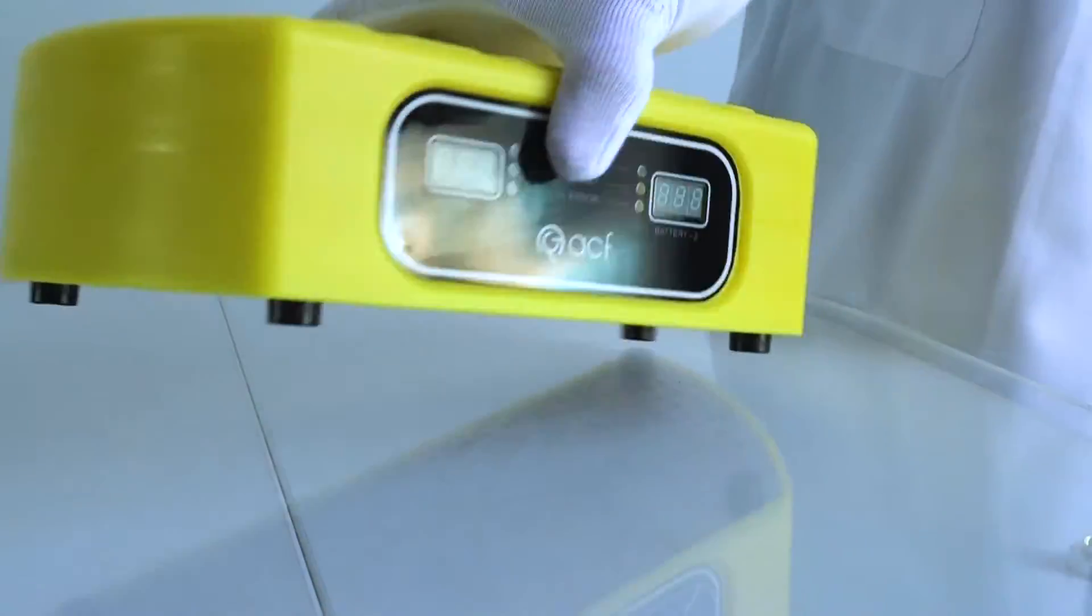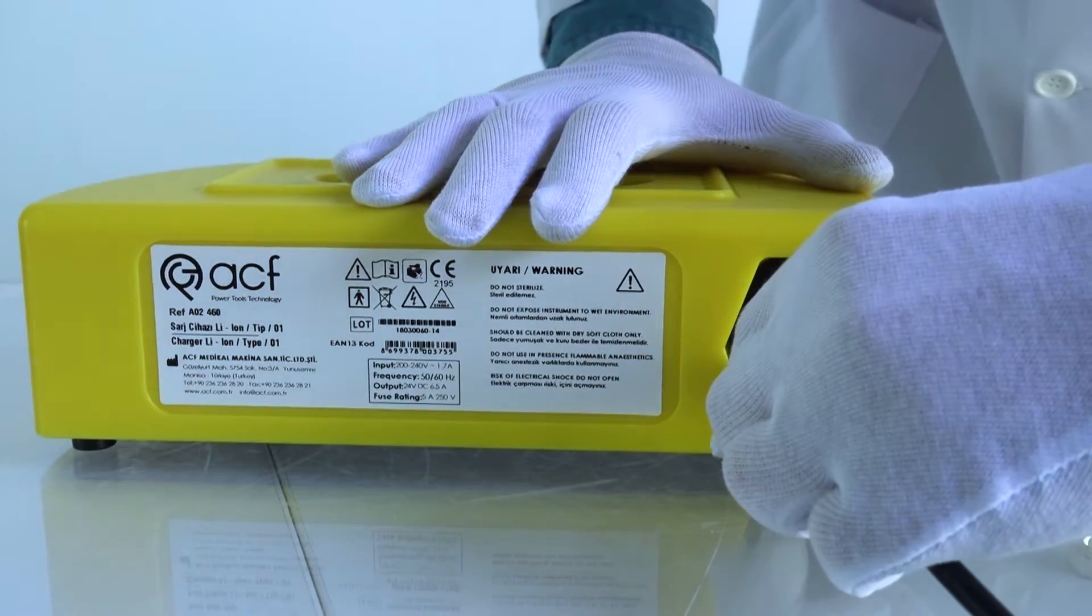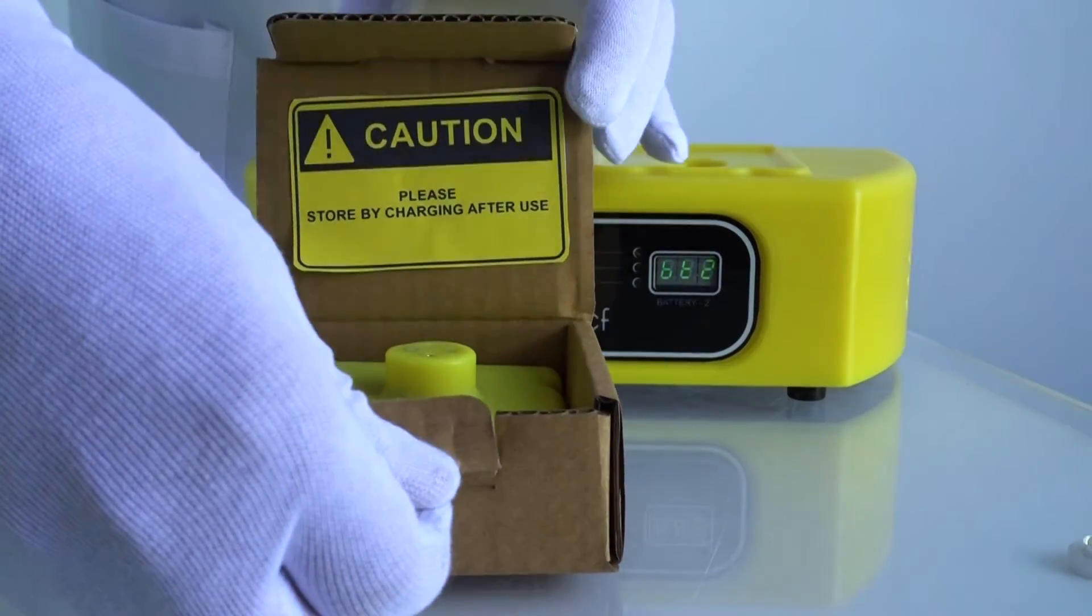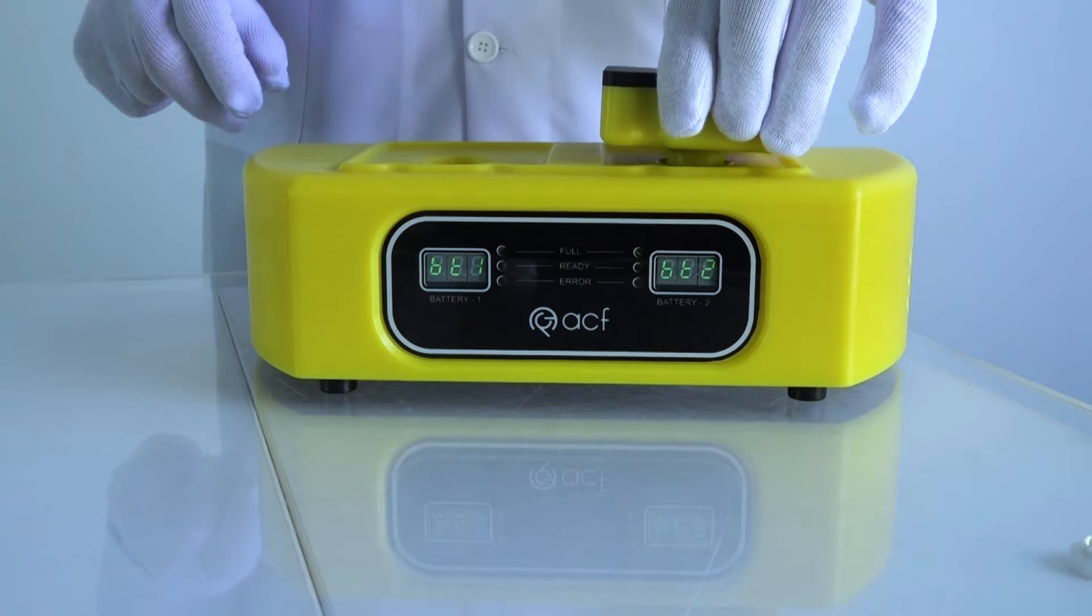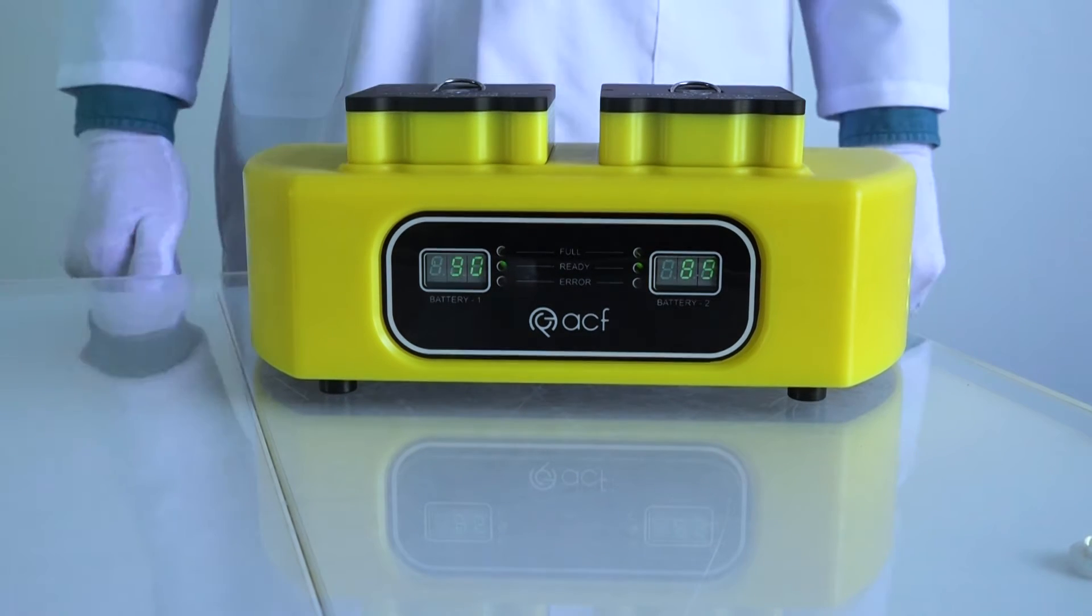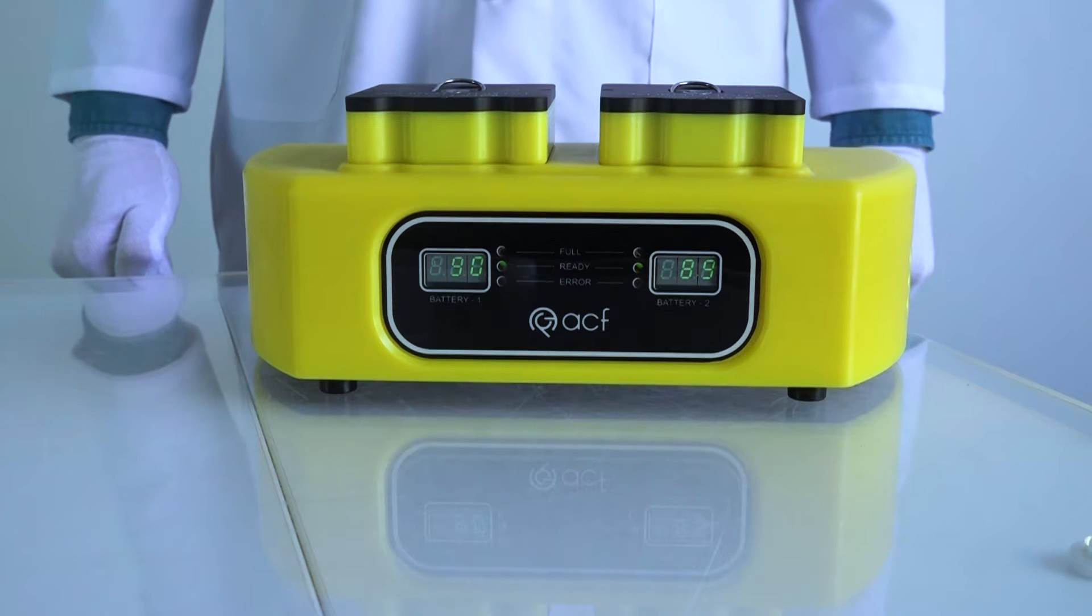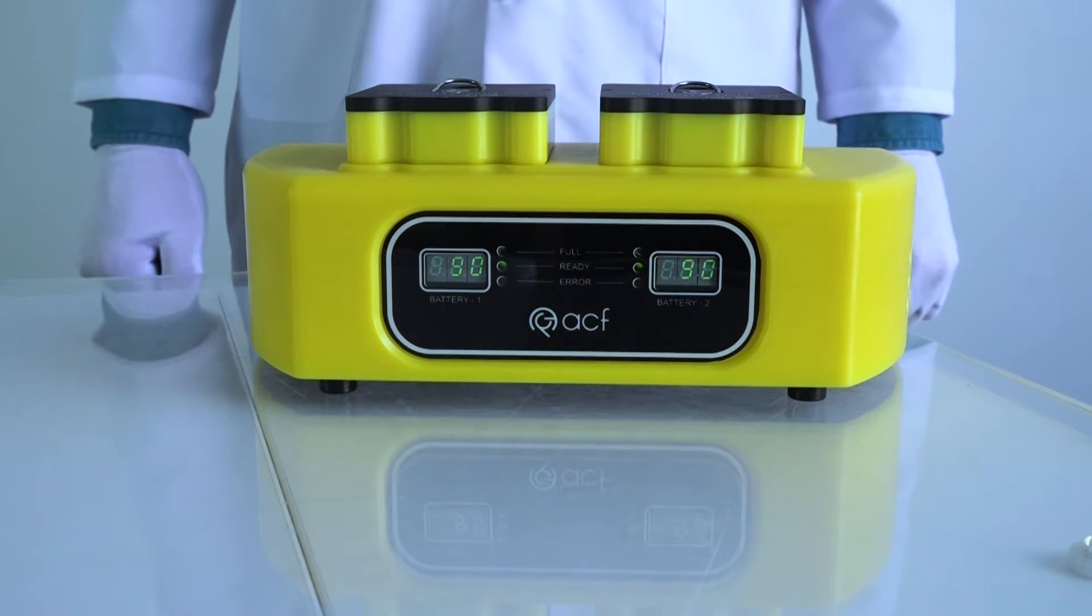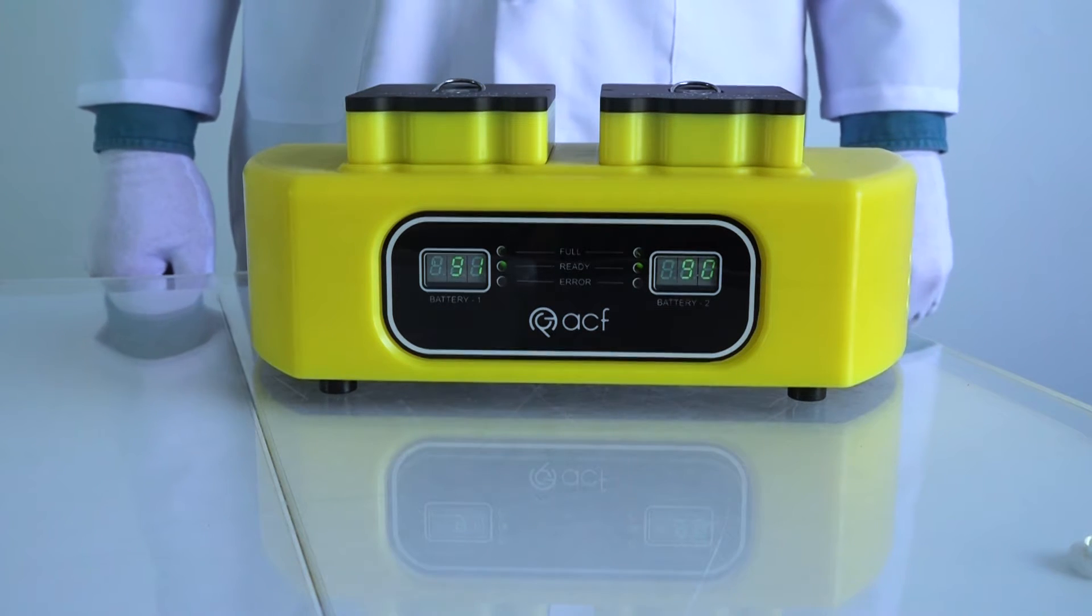ACF lithium batteries have a special battery protect control inside the program electronic card. This card does not allow the battery to fall below 60%. When batteries try to work at 60% charging state, power tools get lower performance. Charging from 60% to 100% takes only 15 minutes.